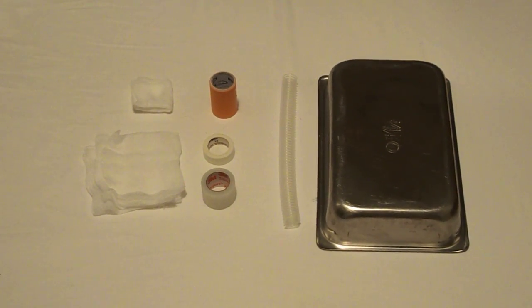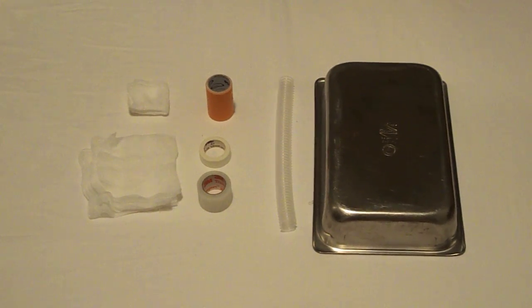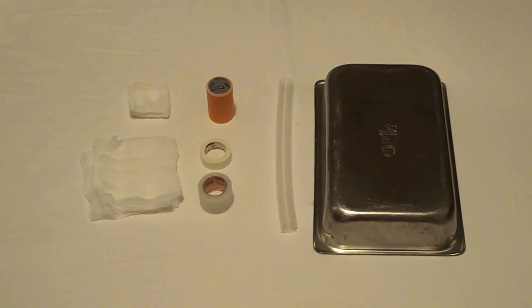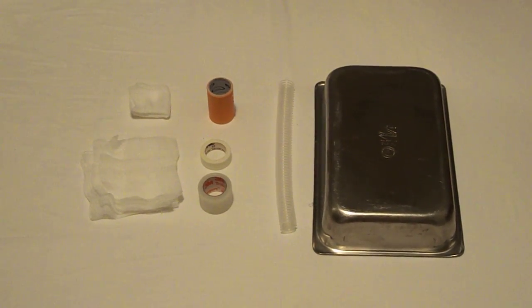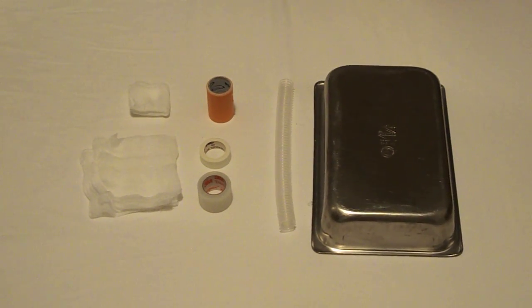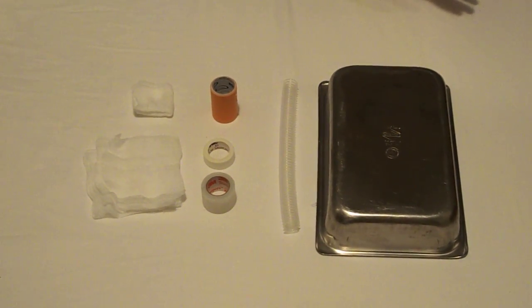This is the equipment that you'd use to make a simple cric trainer. You can add on additional things as well like a bag to act as the lungs and you'll also need tools to perform the cric which I've not shown here.